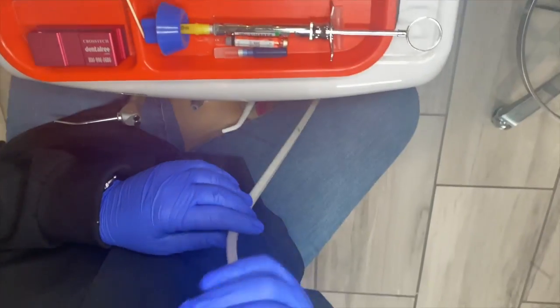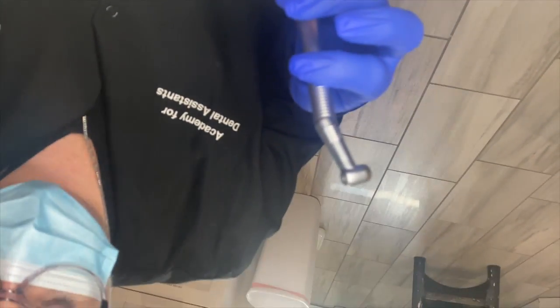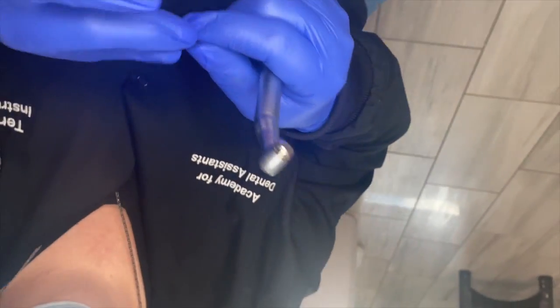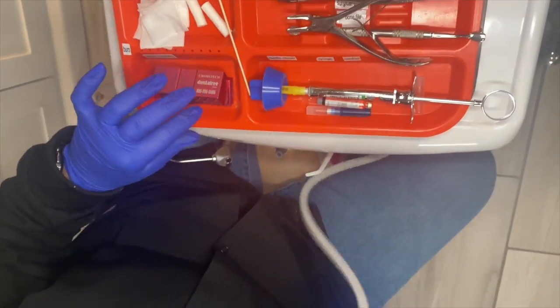You would also put a handpiece on the tray just in case you need it. This can go around the edges of the tooth before you start, and you would use a 557 burr. That is your surgical extraction setup.